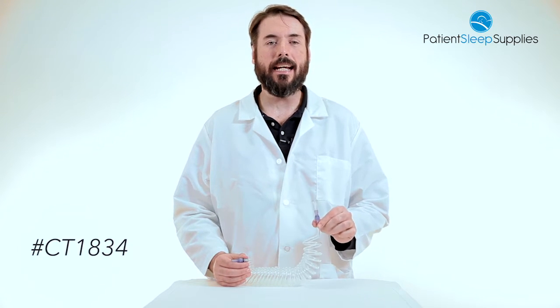Today we're looking at Tidy Tubing Oxygen Tubing, product number CT1834.